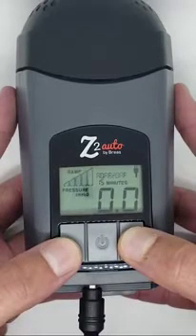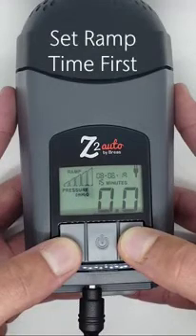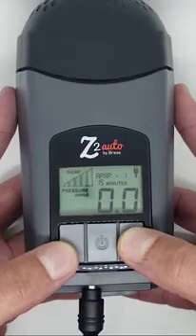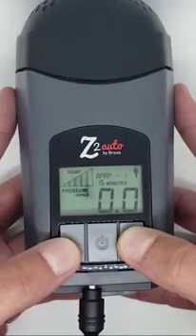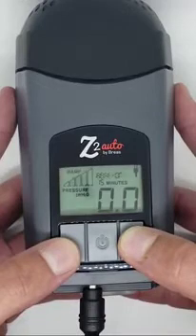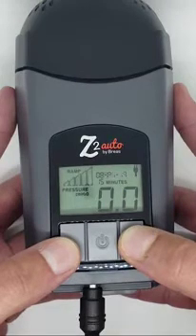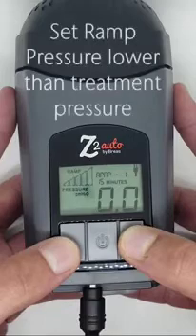You must set the ramp time first because if you attempt to set the ramp start pressure before you set a ramp time, you will get an error message. Once you set a ramp time, you can then set the start pressure. In a fixed pressure Z1 or Z2 or in CPAP mode on an auto device, the ramp start pressure must be set lower than the treatment pressure.